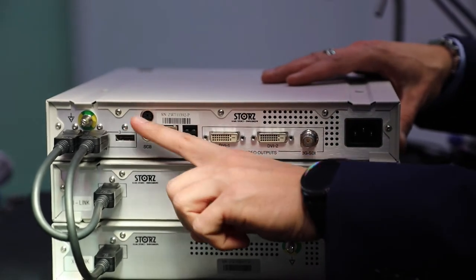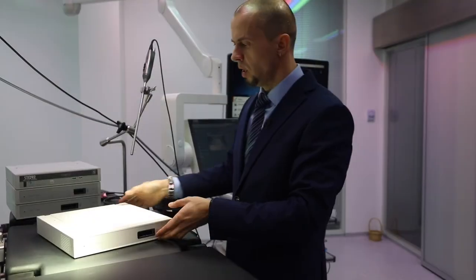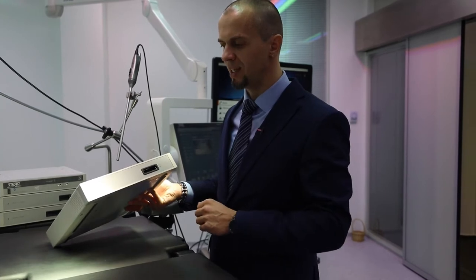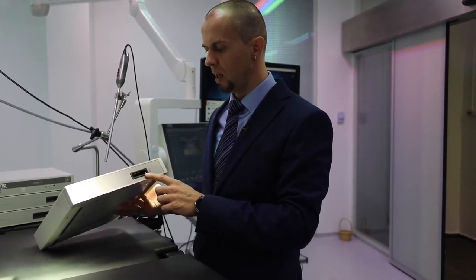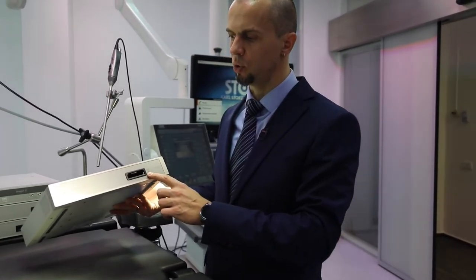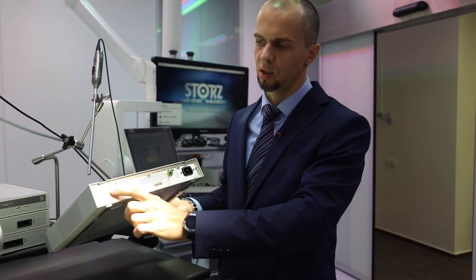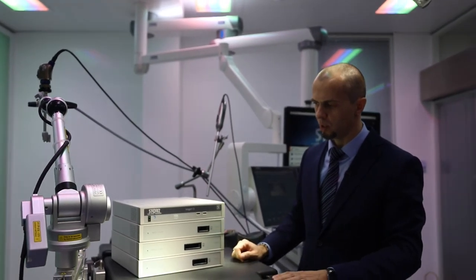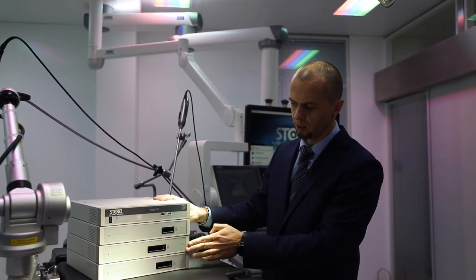С задней стороны система будет выглядеть соответственно — к каждому линк-модулю идёт свой линк-кабель. И наконец, пока последний линк-модуль — модуль D3-Link TC302. Это долгожданный модуль для 3D-эндоскопии, для 3D-видеолапароскопов. Так же — разъём на передней панели для подключения видеосистемы, сзади — сетевой разъём и линк-выход. Максимально возможная комплектация: H3-Link, X-Link, D3-Link.